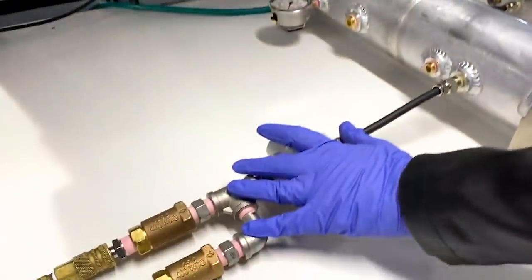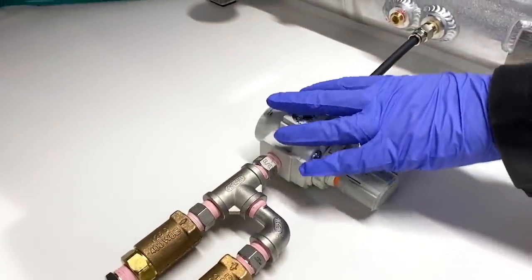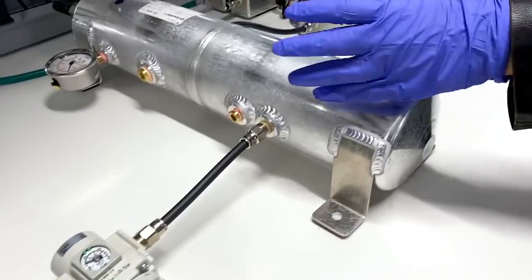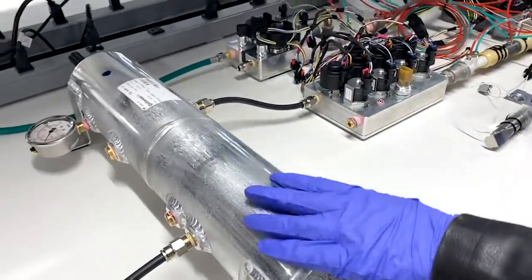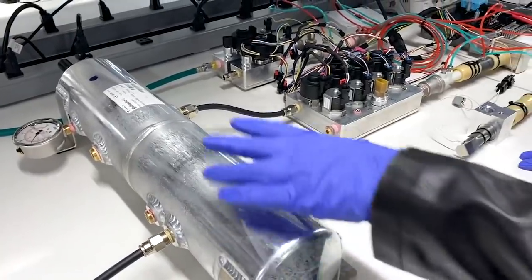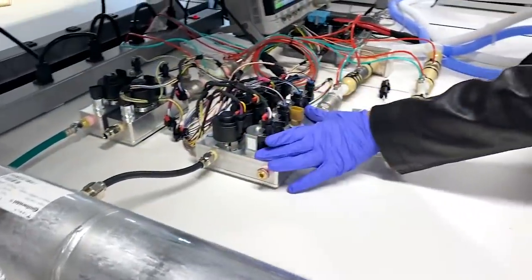So this is the hospital-grade supply of air that is going into a mixing chamber, which is a car part that we use in our vehicles. This is where the oxygen and the air mixes together.